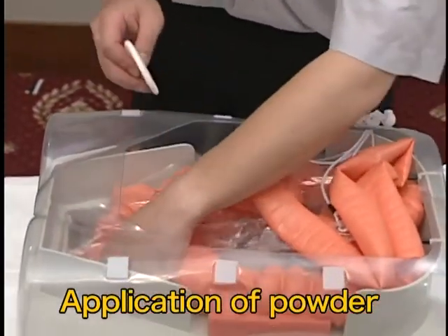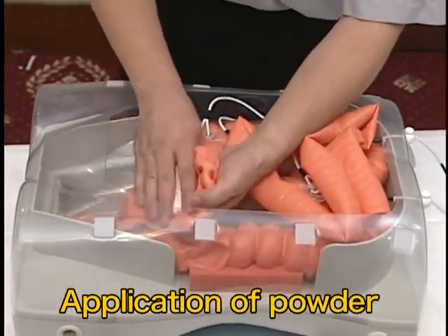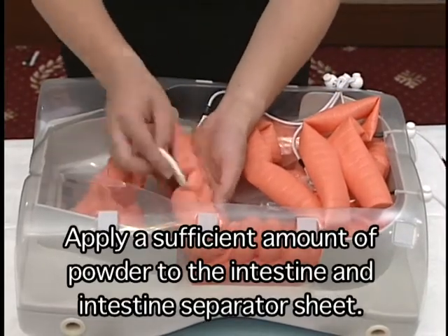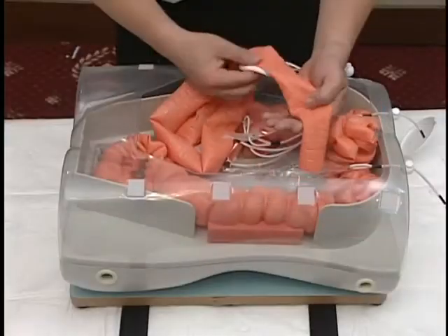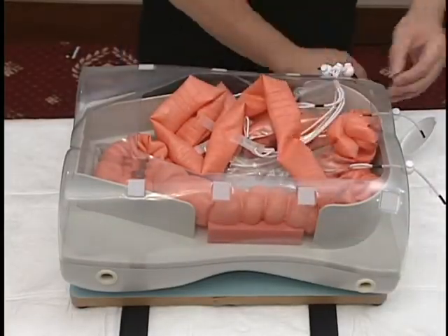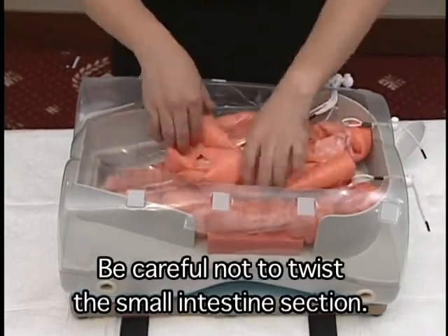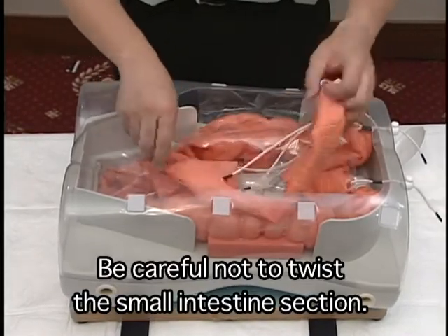If an insufficient amount of powder is applied, the intestinal sections may rub against and stick to each other, interfering with insertion of the endoscope. Place the small intestine on the sheet so it is not twisted or tangled.